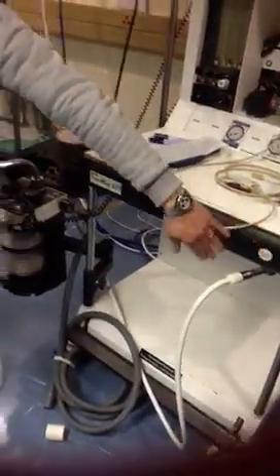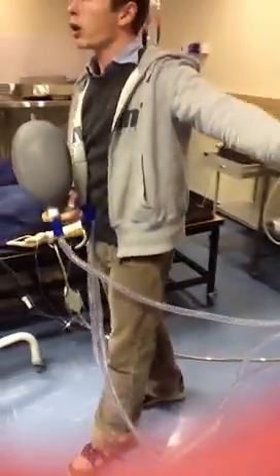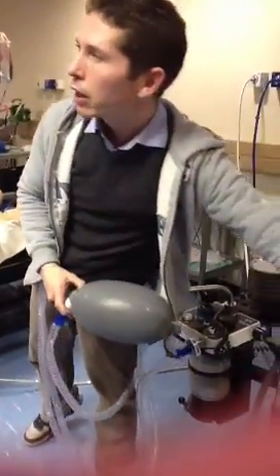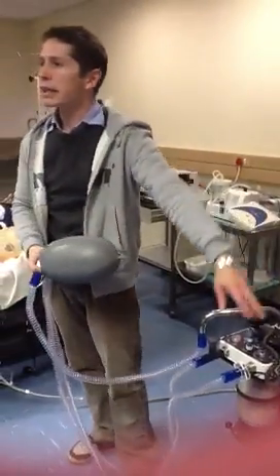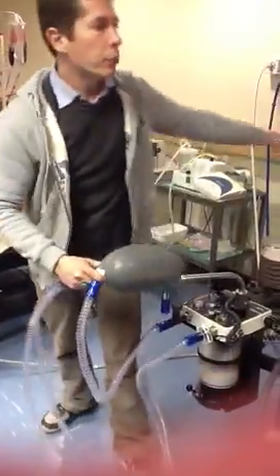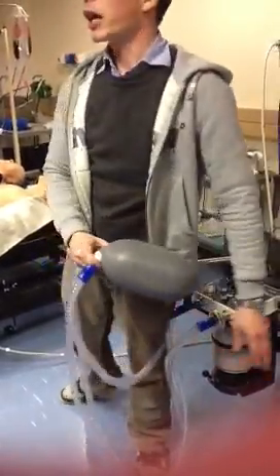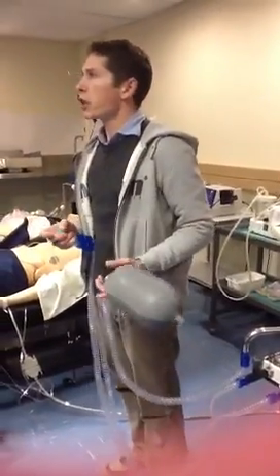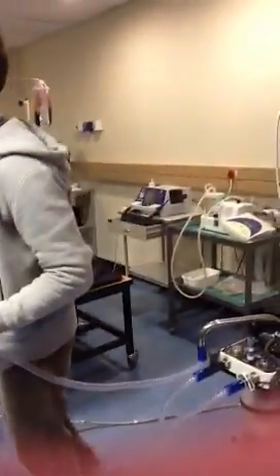What the oxygen flush does is give high flow oxygen, usually above 15 liters per minute, so between 15 to 20 liters per minute depending on the machine, of pure oxygen that bypasses everything and just delivers oxygen to the patient. That's for any emergency situation, if you immediately need 100% oxygen.